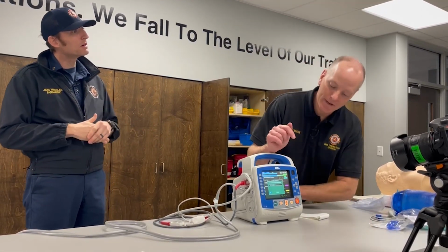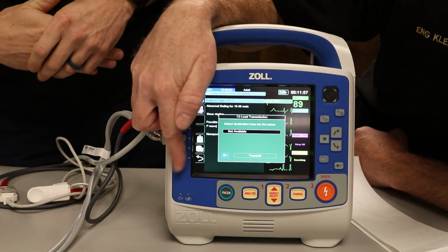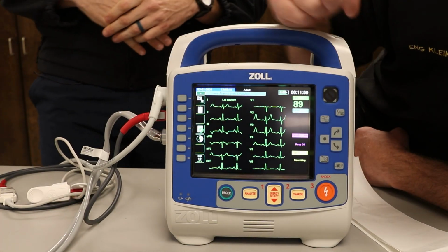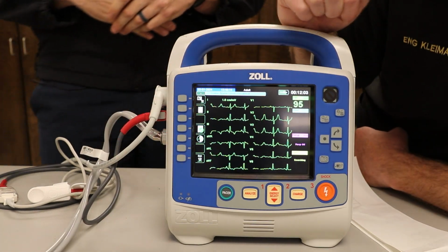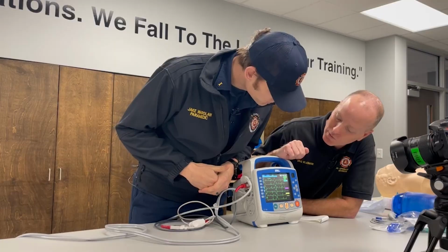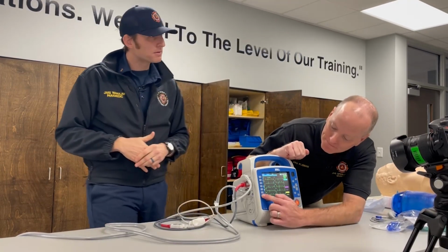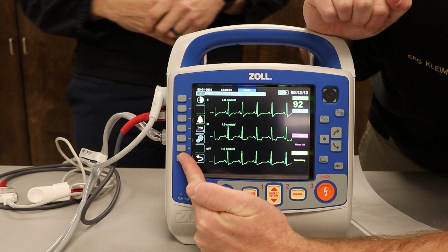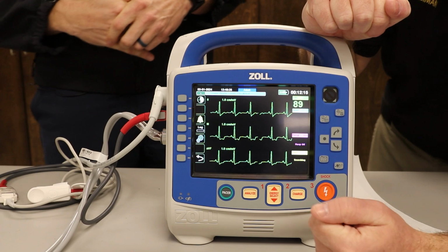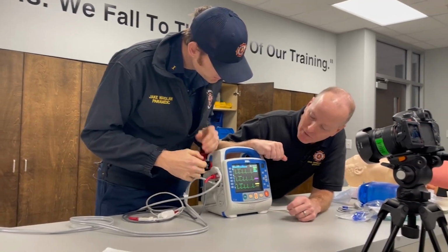Well, that right here is actually not as hard as you would think. So first thing we're going to do is get out of this screen. Anything else you want to talk about here on your 12 leads before we get out of that and go find some old ones? I'm doing a quick scan. Nope. Not that I can think of, Dave. So we're going to exit 12 lead. The easiest way to do it when you're going back is the log button. That's how I like to do it. So go ahead and push your log for me over there.